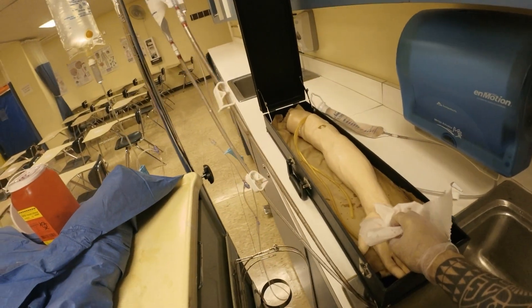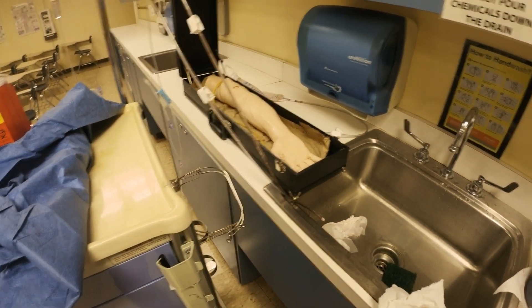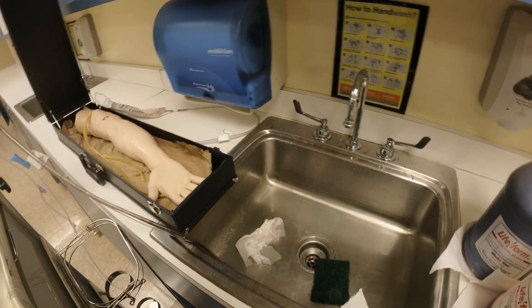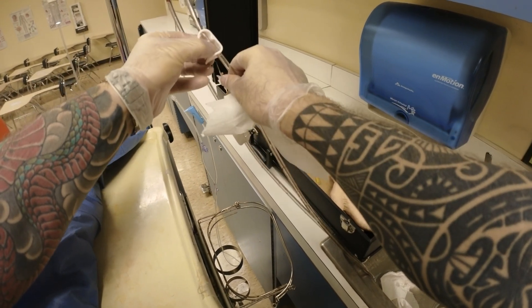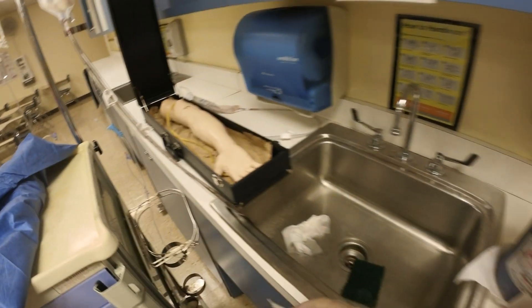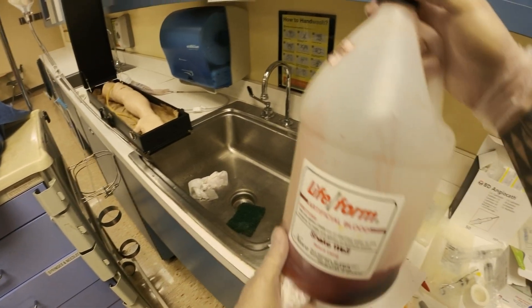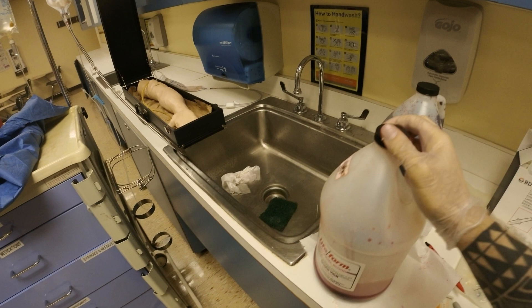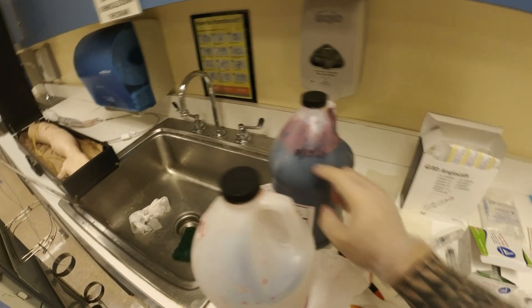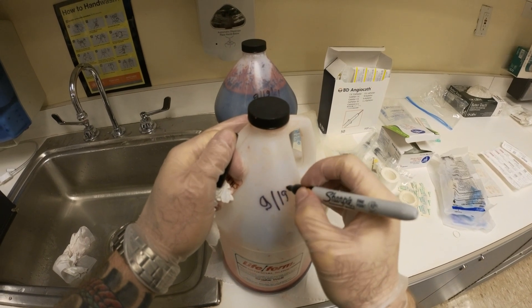You're going to let it air dry. Once it's air dry, put it back into storage. These bags are going to be hanging on the storage rack. Clean them, make sure these clamps are open so that kinks do not form — move them around for that reason. I saved my blood so I can reuse it later. This is the new blood we made — label it. I label it from 9/19/21 so we know when it was made.